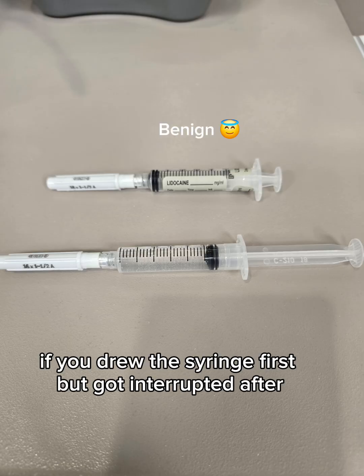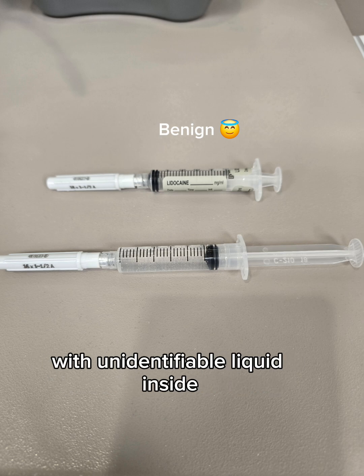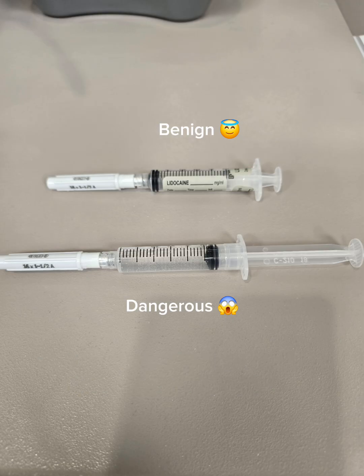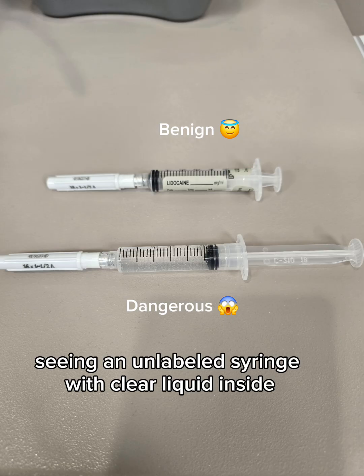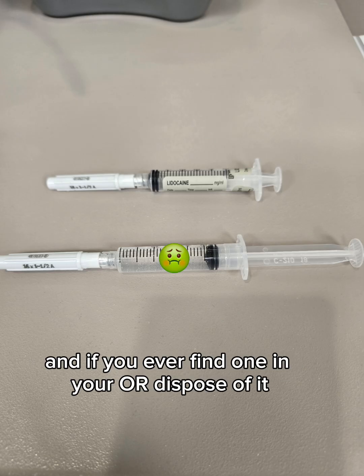On the other hand, if you drew the syringe first but got interrupted after, there is a moment where you have an unlabeled syringe with unidentifiable liquid inside, and now a medication error becomes a possibility. Seeing an unlabeled syringe with clear liquid inside should make you sick to your stomach. Avoid this as much as possible, and if you ever find one in your OR, dispose of it.